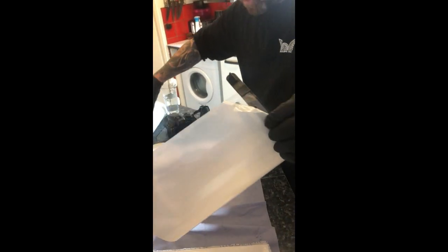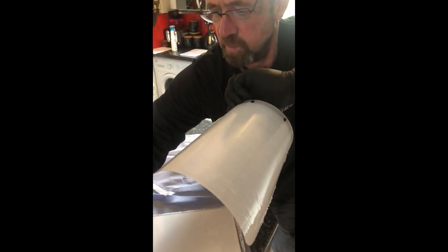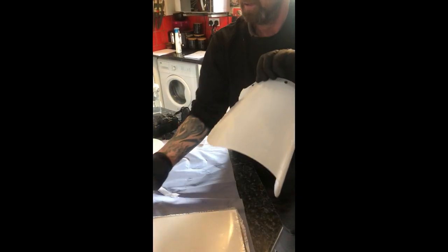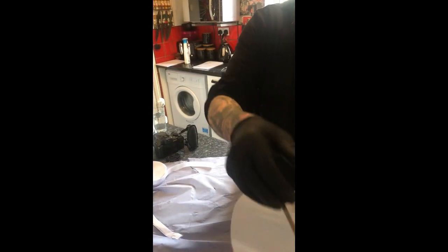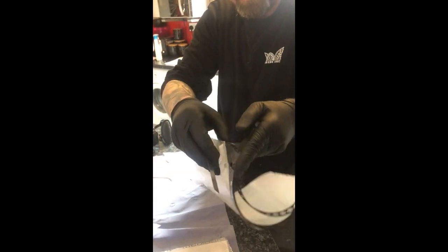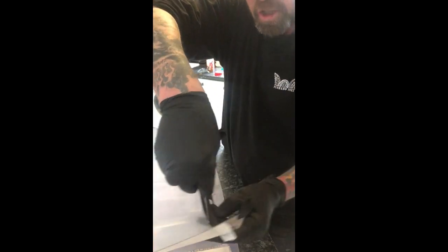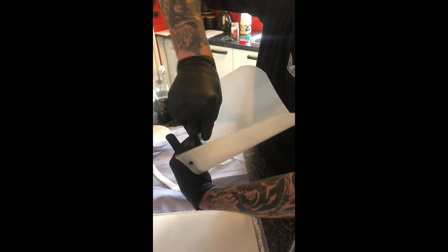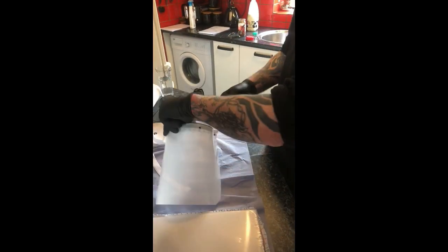If you want to build them with the protective shield on, you will have some form of scalpel or cutting implements — for instance, a clean knife. For the outside film, you can just peel it off, and then for the inside film, just run a very sharp blade around on the inside. It's 0.5mm poly so you won't cut the poly or your fingers, and then you can pull the inside shield off.